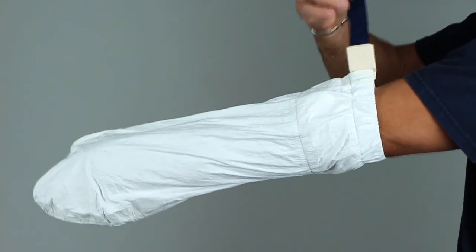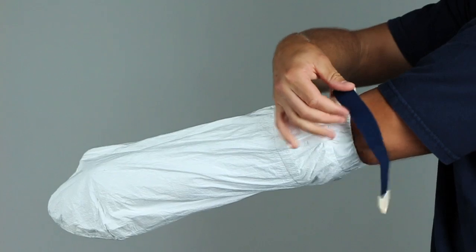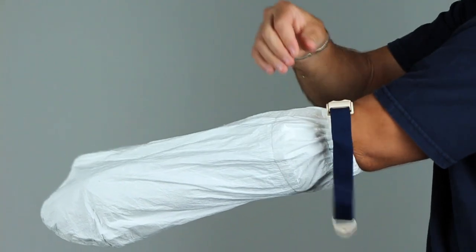Finally, grasp the blue strap and again pull it tight enough to create a seal, but not too tight as to cause any pain or discomfort.